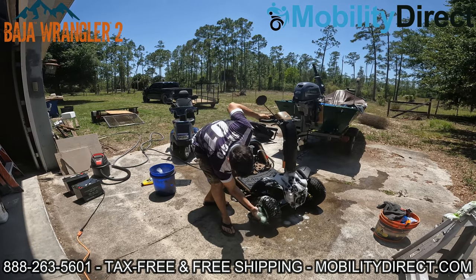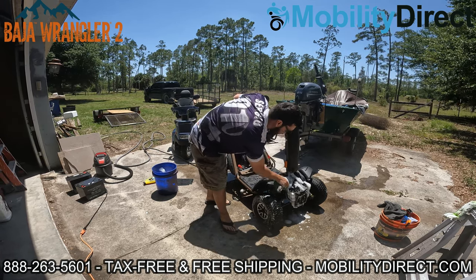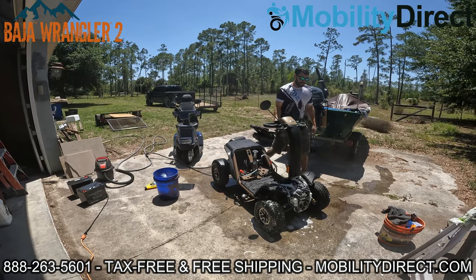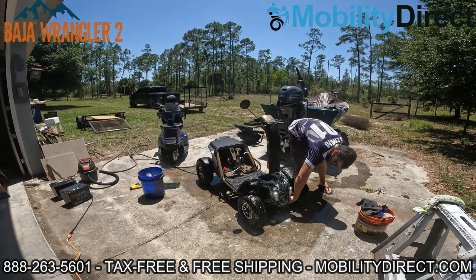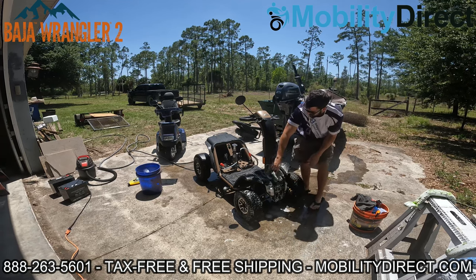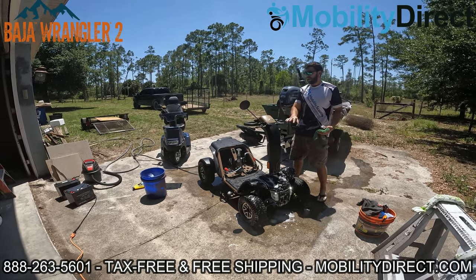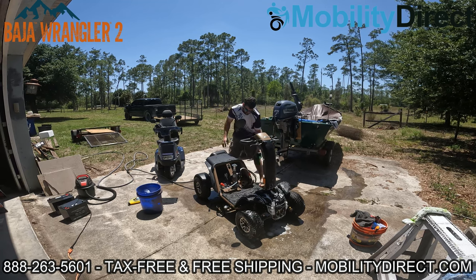Tires — make them look nice and shiny. Everybody likes their rims looking shiny. Wipe the tires down a little bit and make them shine. There's no secret to washing a mobility scooter other than just don't get water where it doesn't belong — just be careful. You don't really want to spray too high up here because all of this area has electronics in it. I'm going to wipe that down with a microfiber cloth — maybe dampen it a little bit — but I'm not going to spray up there with a hose.